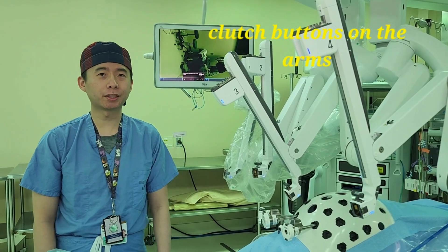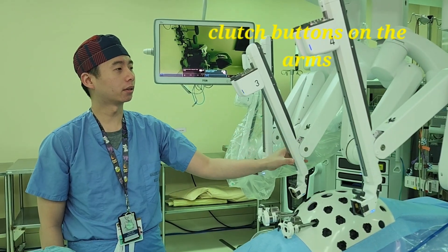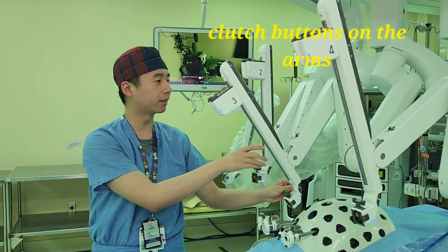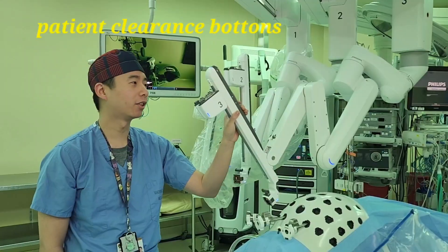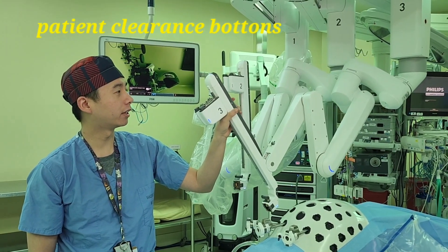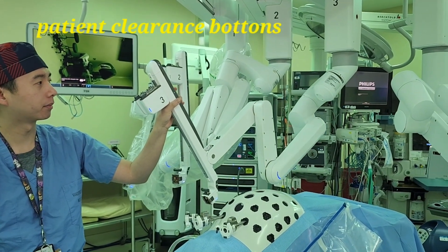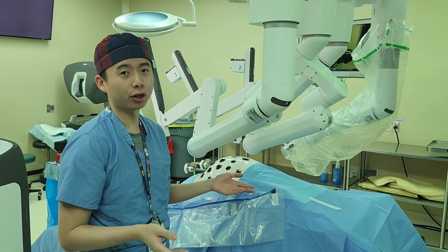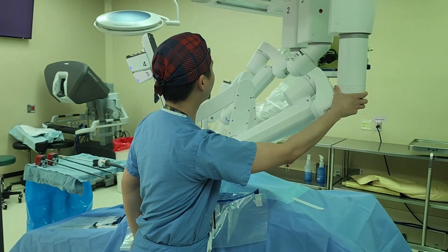There are several ways you can move the arms into position. You can grab the arm and freely move it, or you can press the top button to move it up, and the bottom button assists with moving it in and out, left to right. There is also a button on the back that assists with clearance — you can press it to move the entire apparatus to reduce collision. For the far left and right arms, you can move the entire arm left and right.